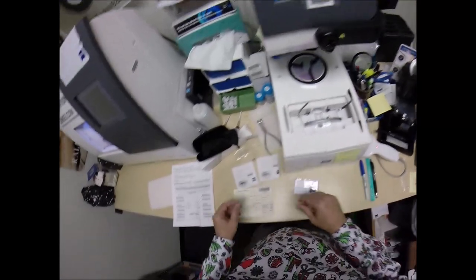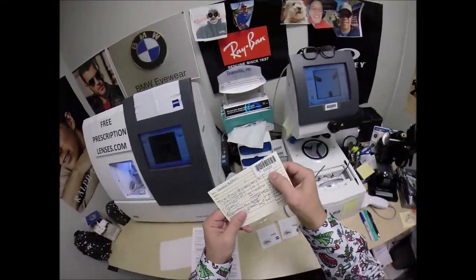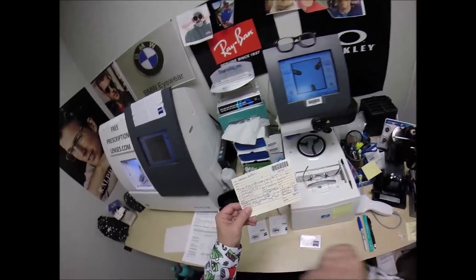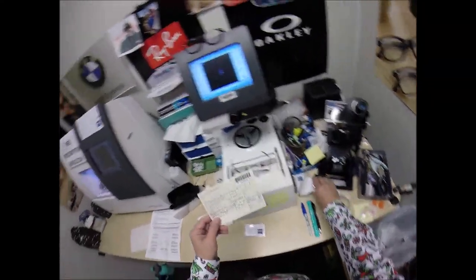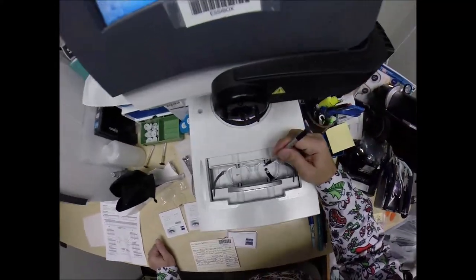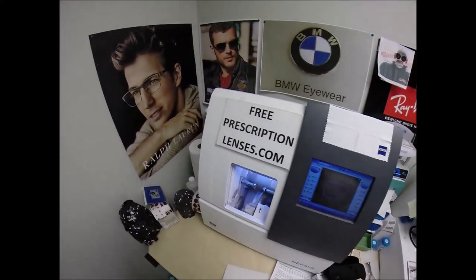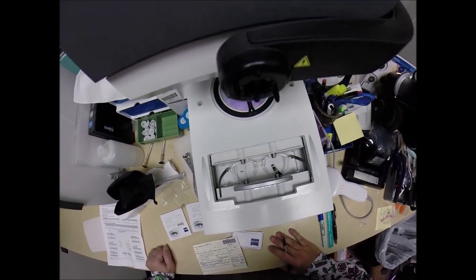I'll put the frame into the tracing element of my blocker. Now I'm up to number 2270, but I saved job number 2020 because it's a symbolic number to me in my profession — I'll get back to that a little bit later. I hit the start button, a little stylus pops up and goes around to trace the inside bevel of the right side of the frame, then does the same thing on the left. Here at FreePrescriptionLenses.com, where everyone loves a bargain and no one is disappointed in quality.